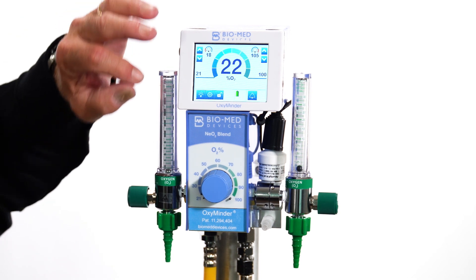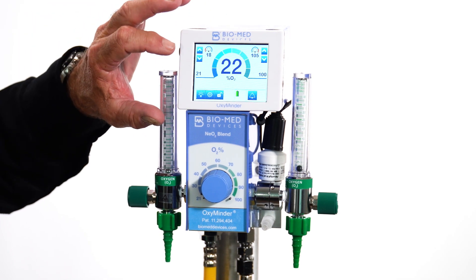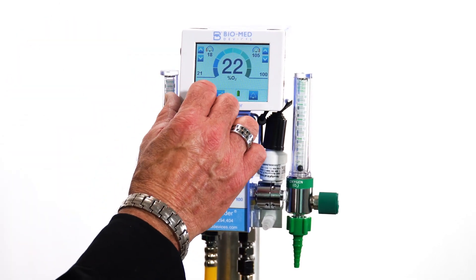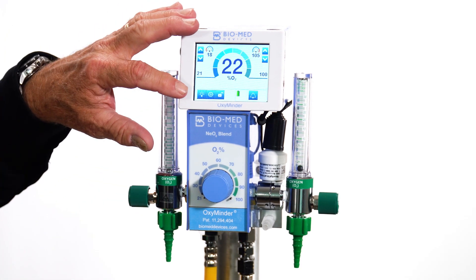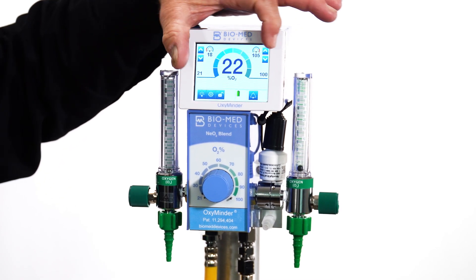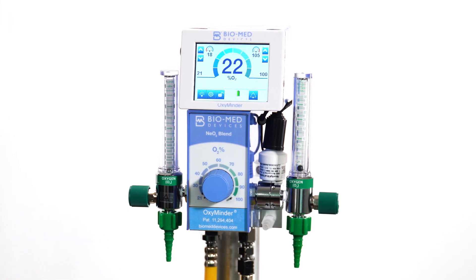The OxyMinder provides continuous monitoring of the oxygen that's being delivered to the patient. It has a touch screen display with good visibility — you can see this thing in a dark room at night, and you've actually got brightness control if you want to make it a little dimmer. You've got a very intuitive display that shows you your lower and your upper alarm parameters, and it's a very intuitive model that is real easy to calibrate. You can calibrate it while it's on the patient or calibrate it off the patient.